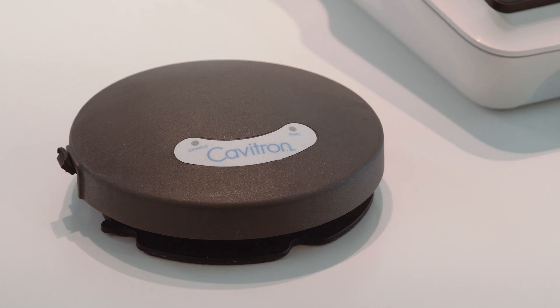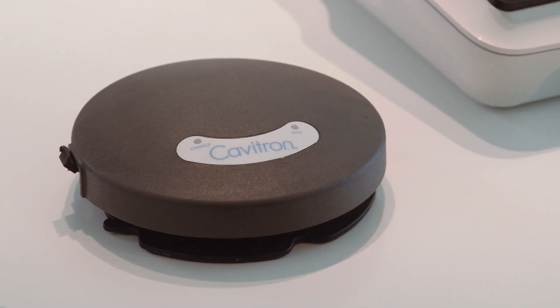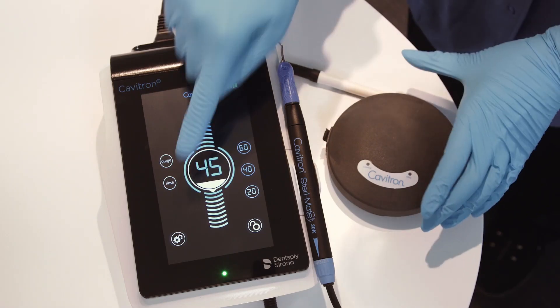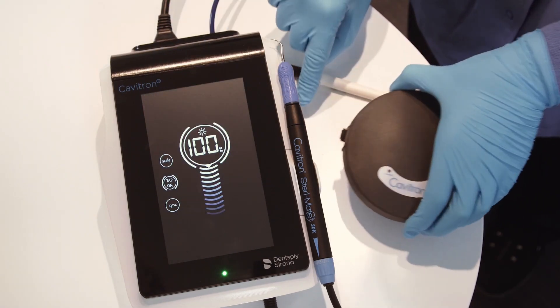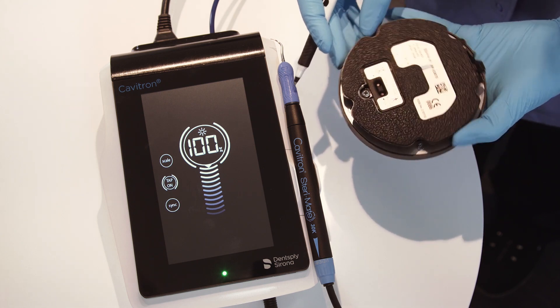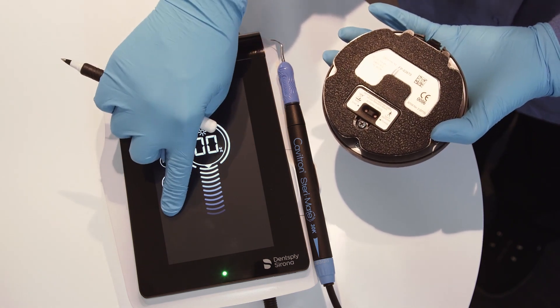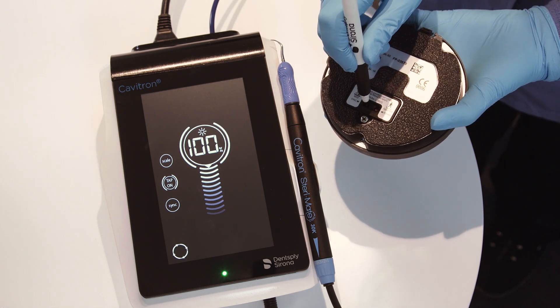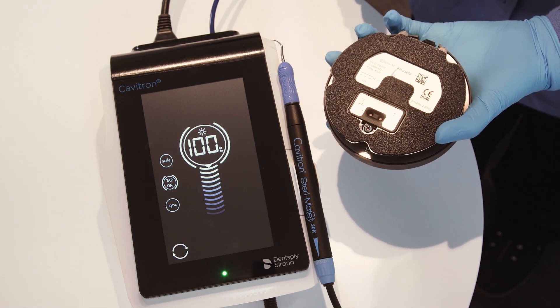The tap-on wireless rechargeable foot pedal supplied with your system has been factory synchronized with the base unit. Should a replacement foot pedal be necessary, synchronization will be required prior to system operation. Users should maintain a distance of no more than 10 feet between the base unit and tap-on foot pedal during the synchronization process.